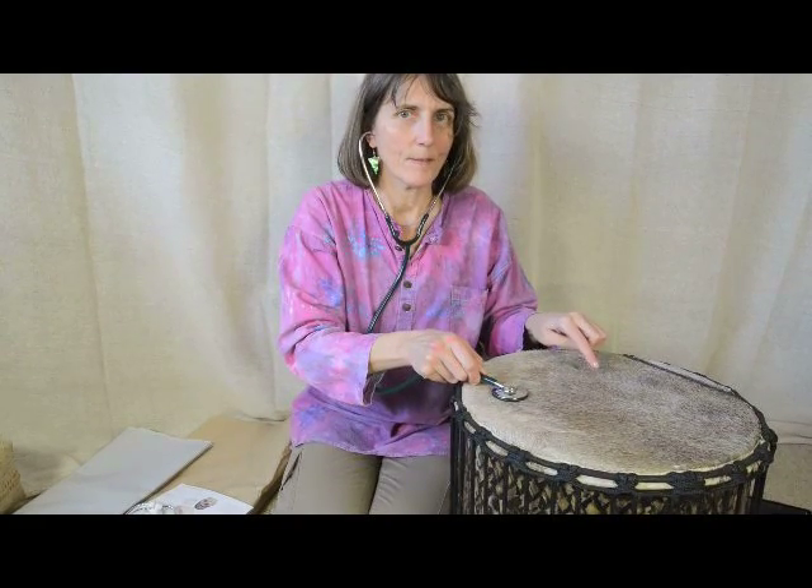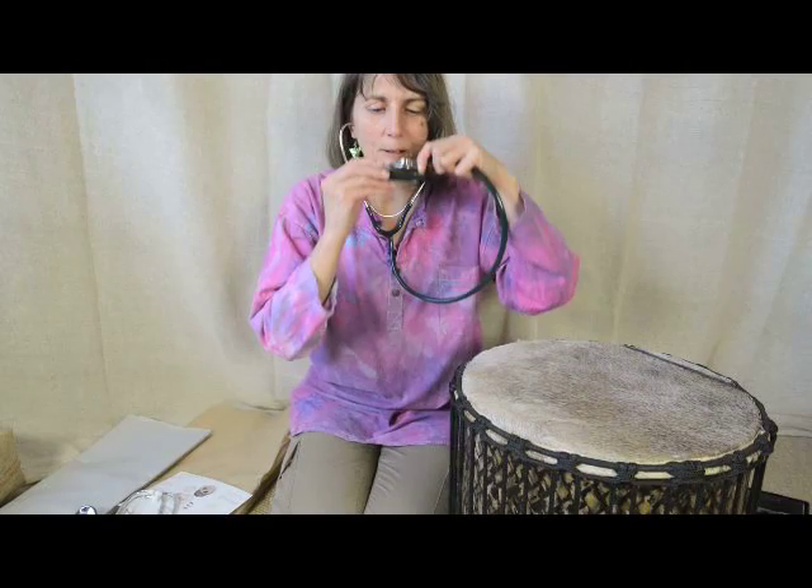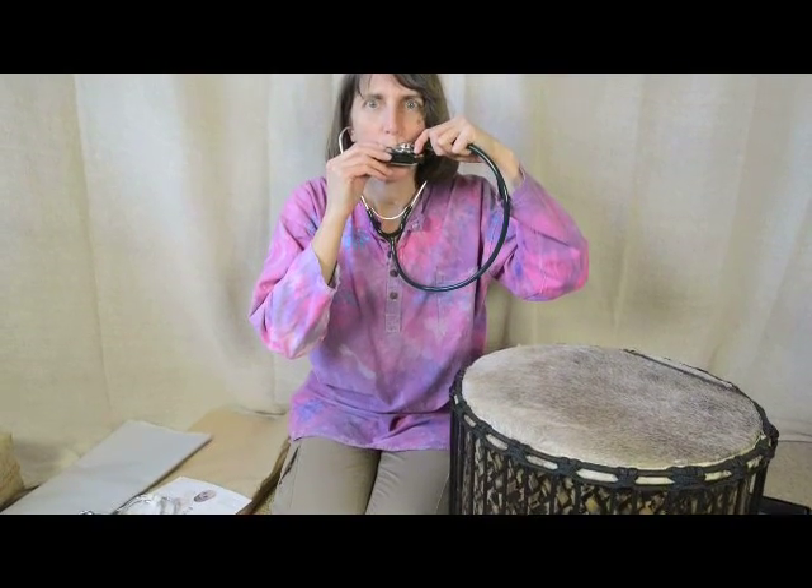I know you can't hear that, but it's really amazing. You can try it on different instruments of course — so this is quite nice. You can also speak to yourself. I was speaking to myself just then but you couldn't hear. I can hear myself blinking and hear myself sniffing. So there's quite a lot of things you can do with stethoscopes. Children tend to do things like see what it sounds like when you listen to the floor, or if it's raining they might listen to the rain on the window.